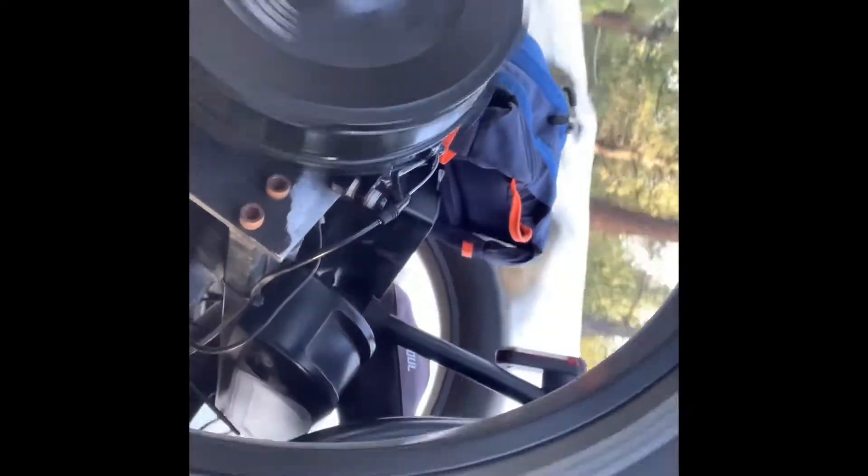I've taken e-assist hand cycling from epic to just unbelievable. I built another hand cycle — I'm riding it right now. It's an all-wheel drive beast, as you can see here, that can literally accelerate uphill faster than I could ever accelerate down a hill. It's pretty insane, and I'll definitely give you lots of updates about that.